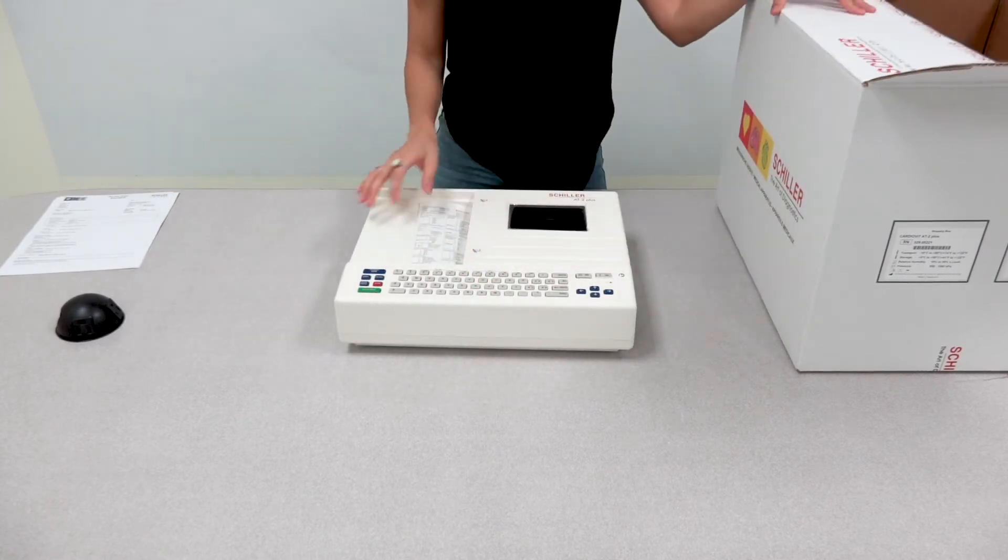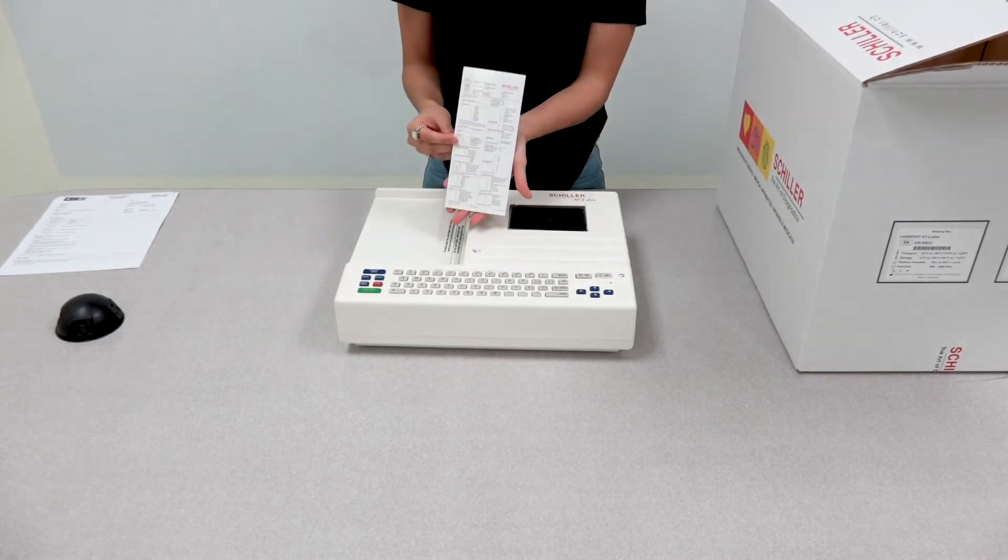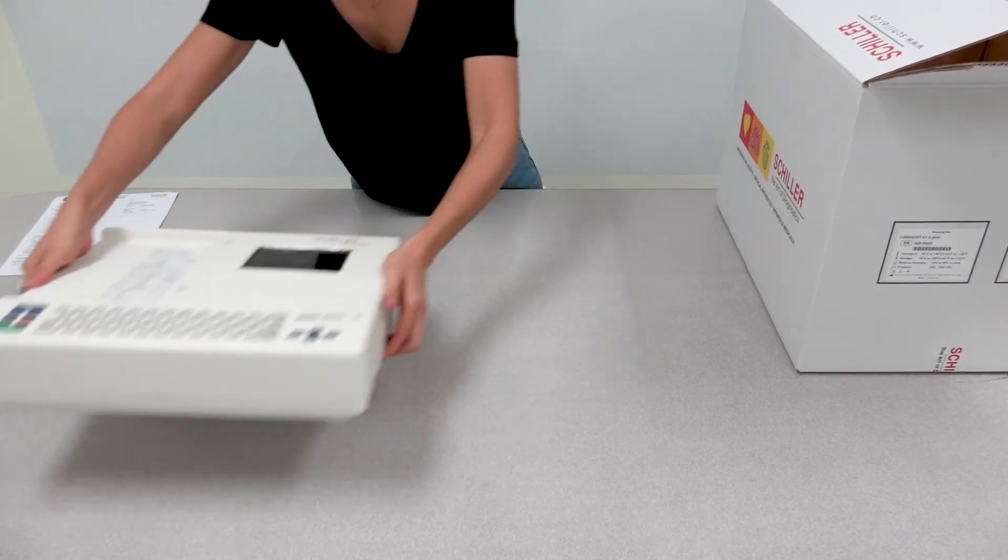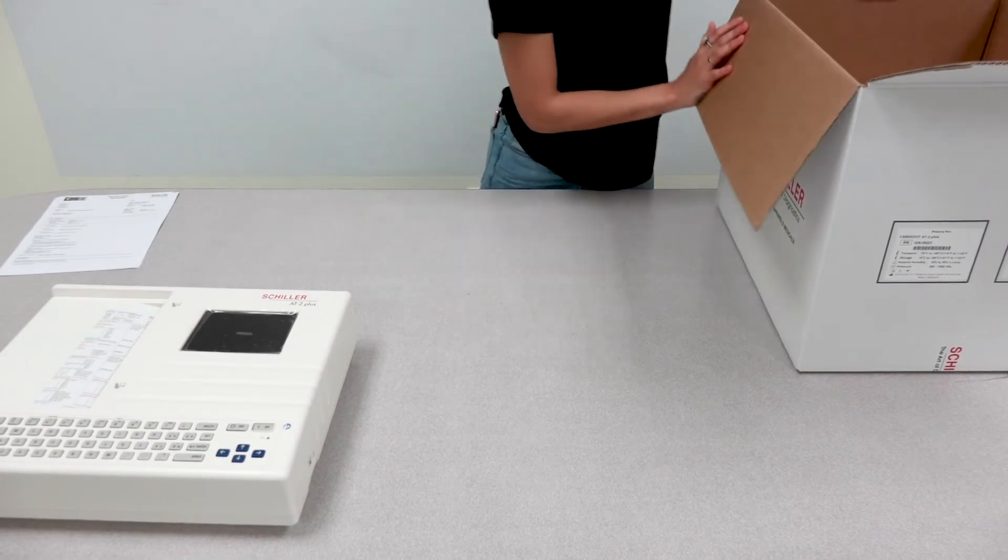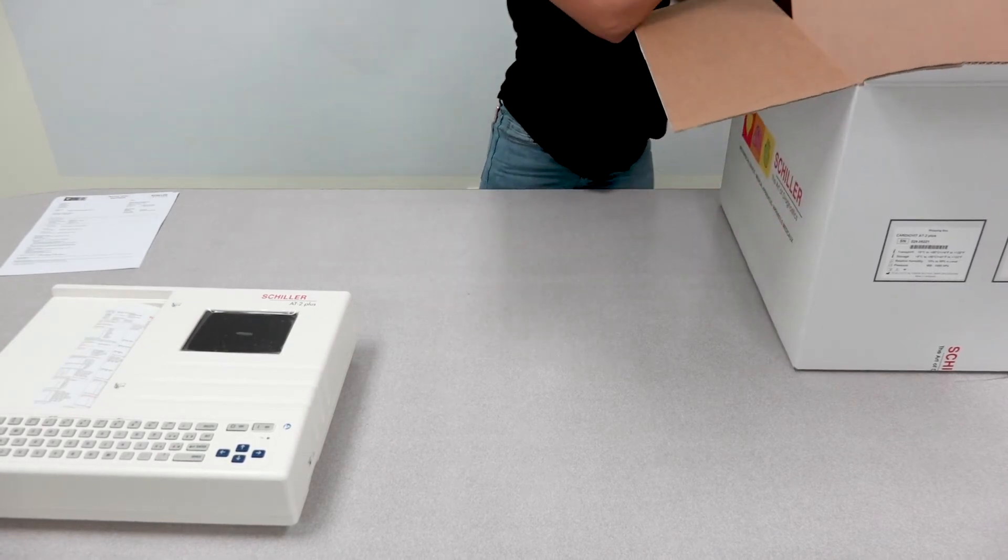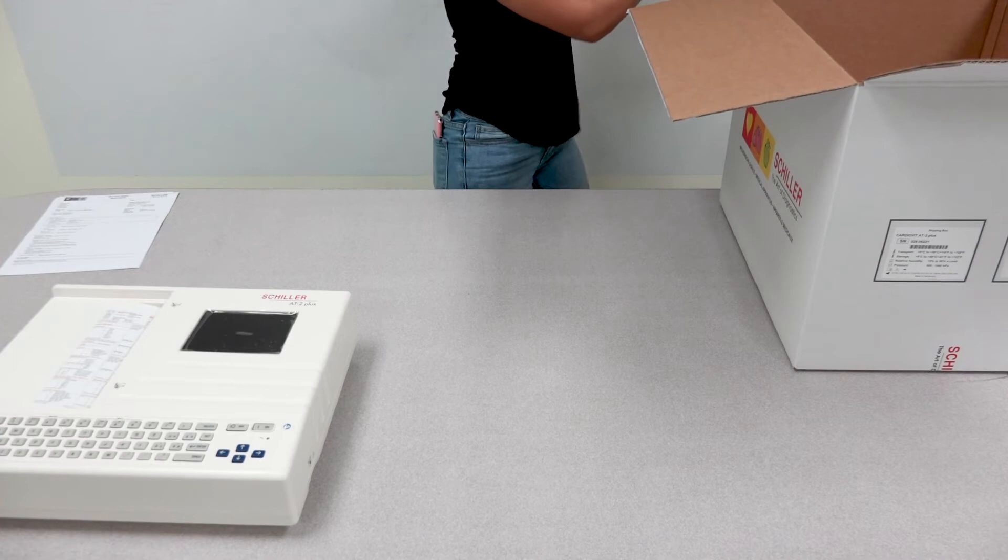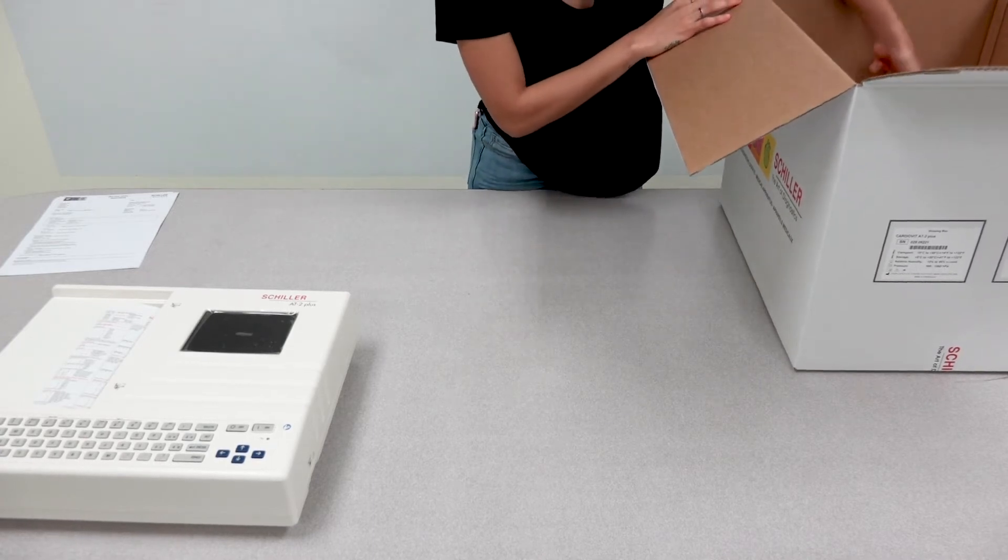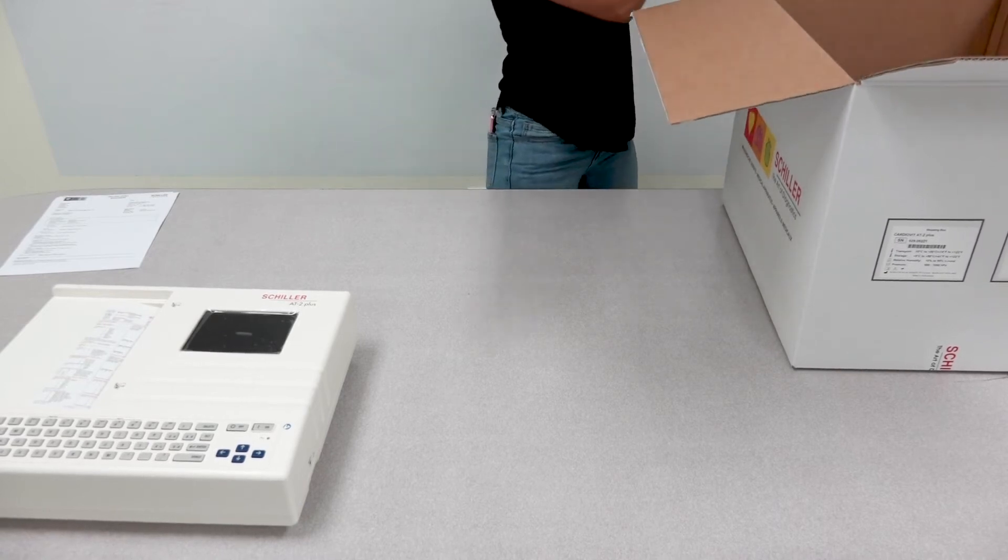The AT2 Plus includes a small reference guide for general settings. Remove the additional cardboard covering.